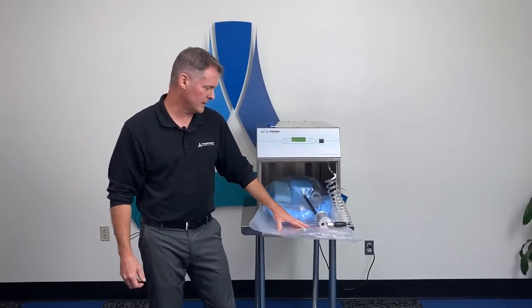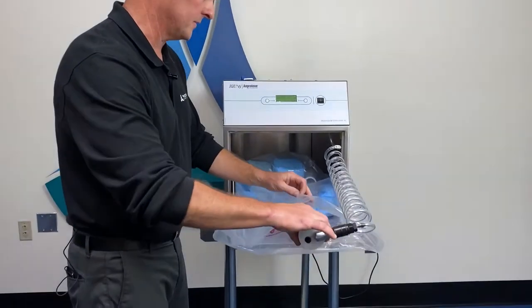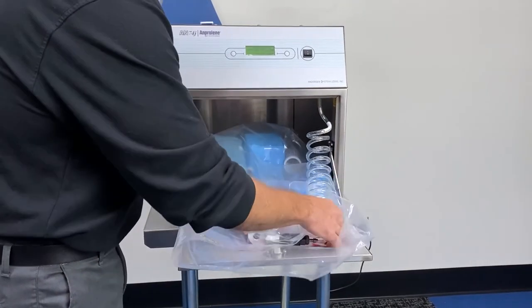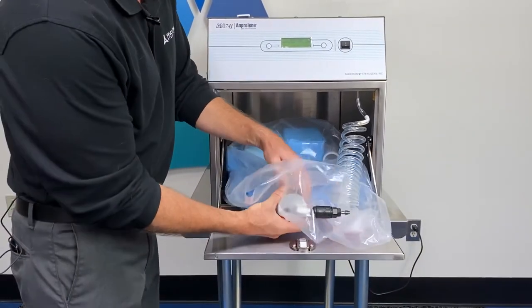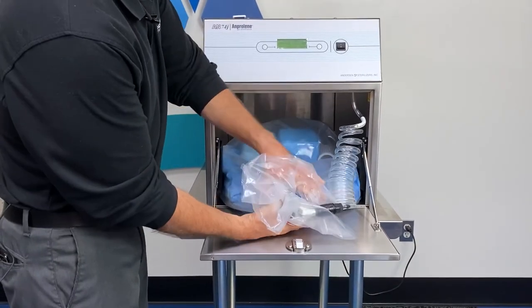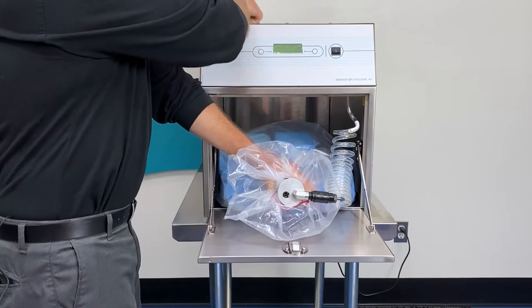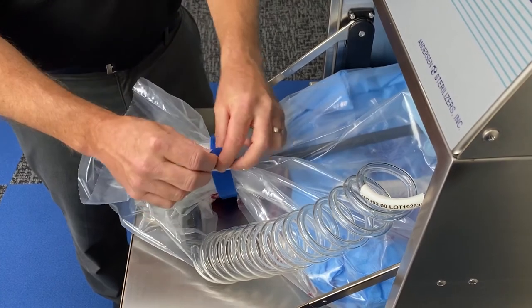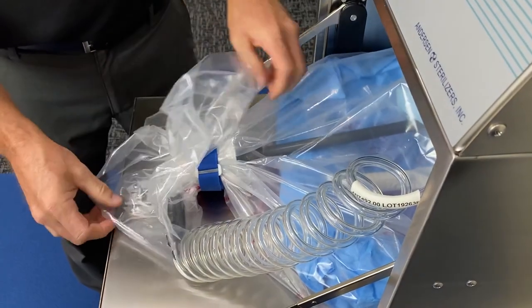The next step is placing the purge probe inside of the sterilization liner bag. Your first step will be simply placing the probe inside of the opening of the bag. The next step will be gathering the plastic around the bobbin of the purge probe, and finally taking your velcro strap and pulling it tight and securing it around the silver bobbin of the purge probe.